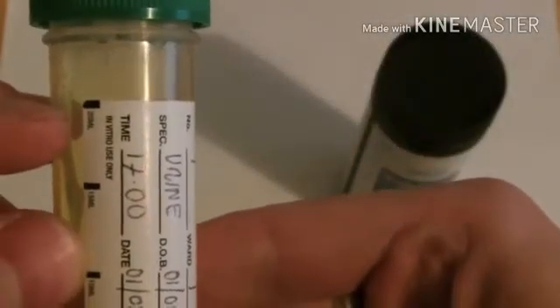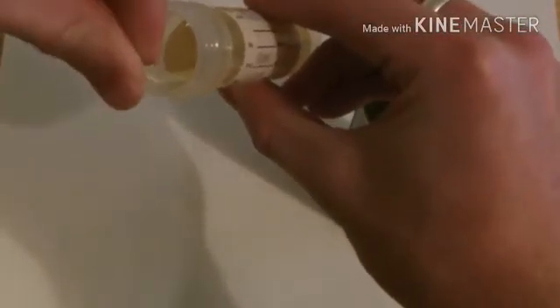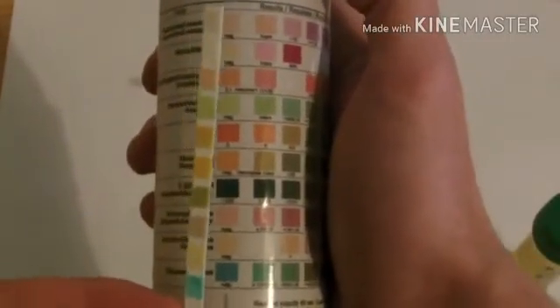Urine screening tests using a dipstick. Get a sample of your urine in a clean container. Remove a strip pad from the strip bottle. Place the strip pad in the urine and gently shake excess urine off the strip. Set your timer and wait for the strip pad to change color. You can do this for about a minute. Then you compare the strip pad to the color chart.